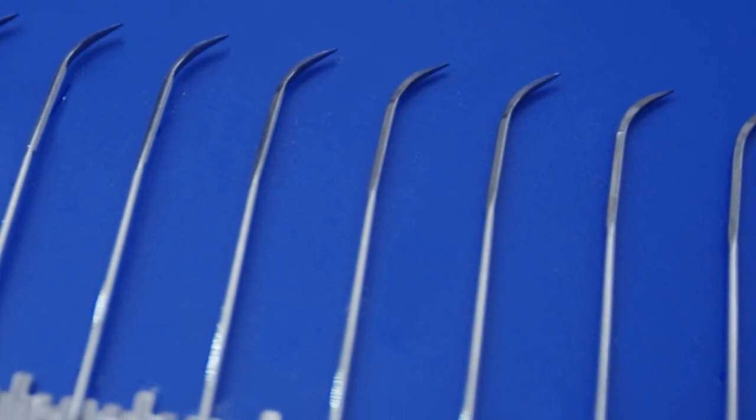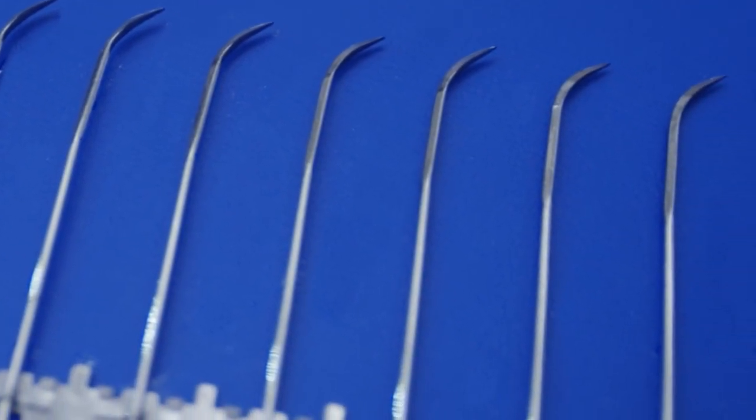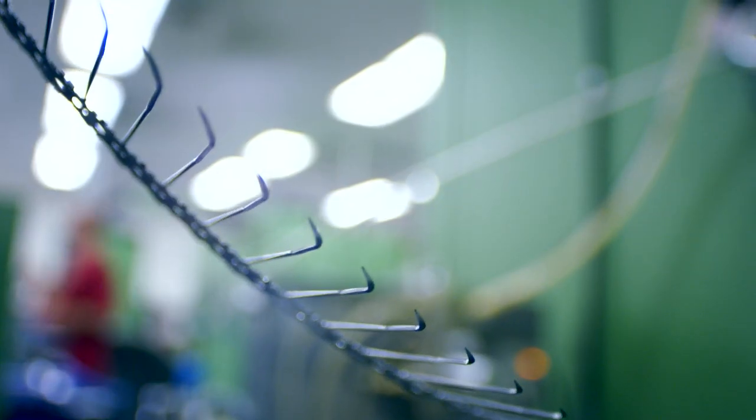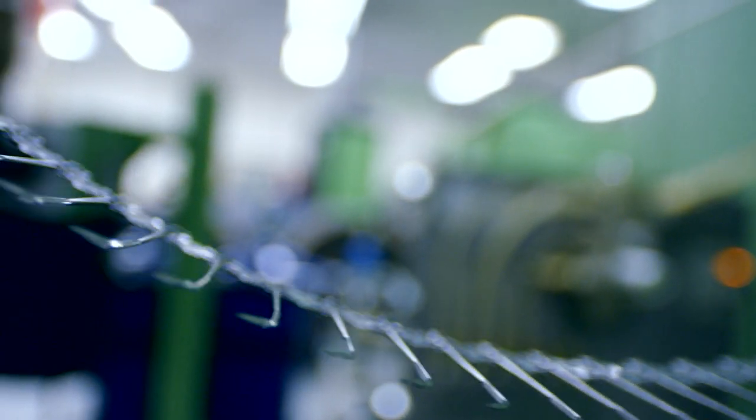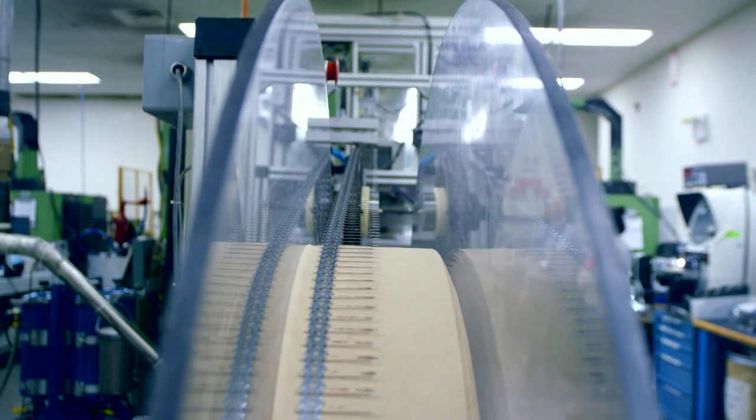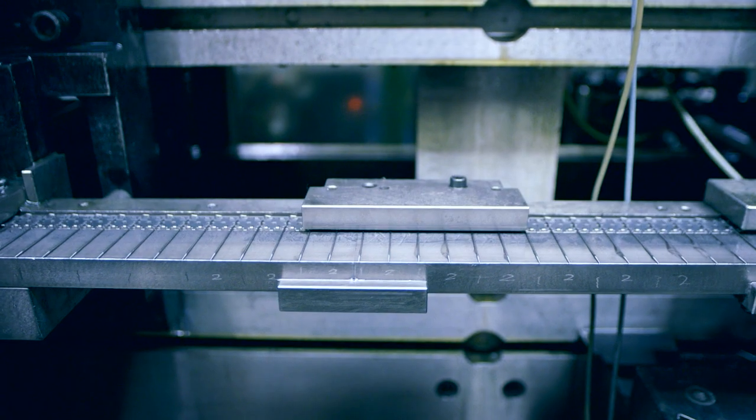These are designed to meet the highly specific needs of surgeons, whether designed to cut skin or dense tissue such as tendon, or tapered to pierce and spread tissue such as coronary arteries without cutting them.